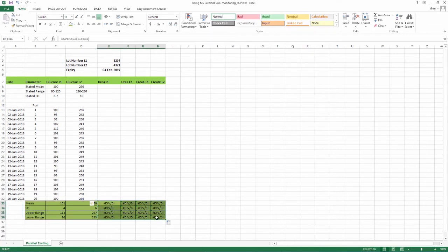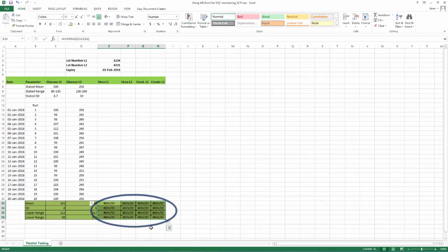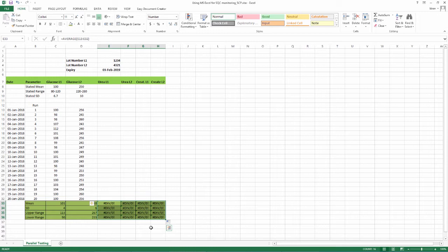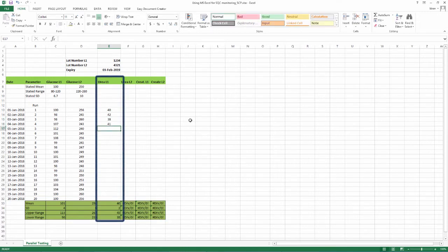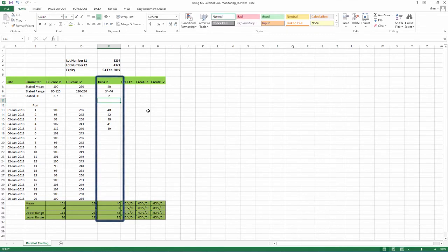In some boxes, error code hash div by 0 is seen. This is because the formula has been put in and the data is missing. When you put data in, formula will work and your mean, SD, etc. will show on your worksheet. You can see in the example that the values for Urea level 1 are entered and the calculations are done automatically.